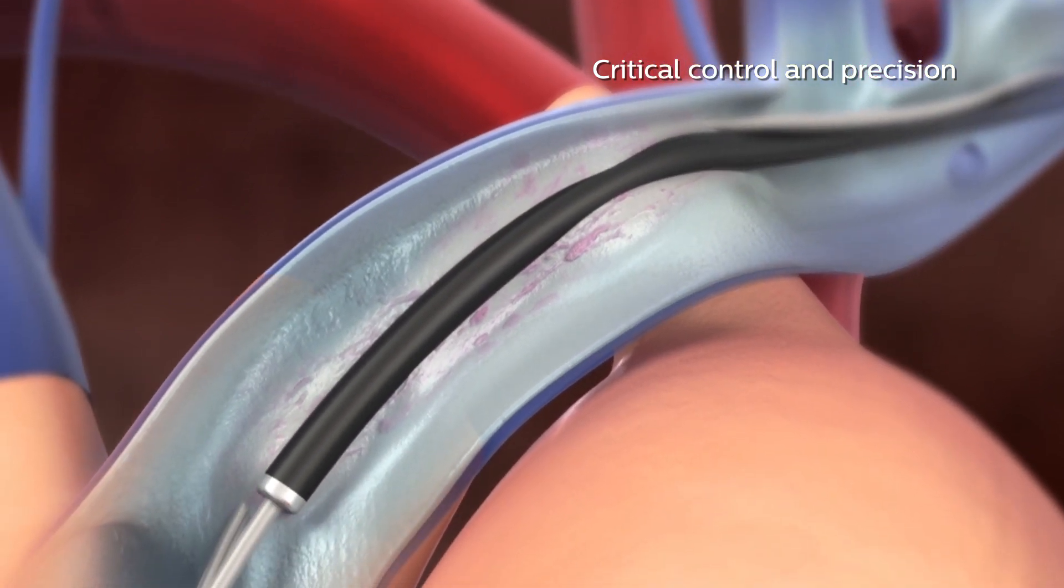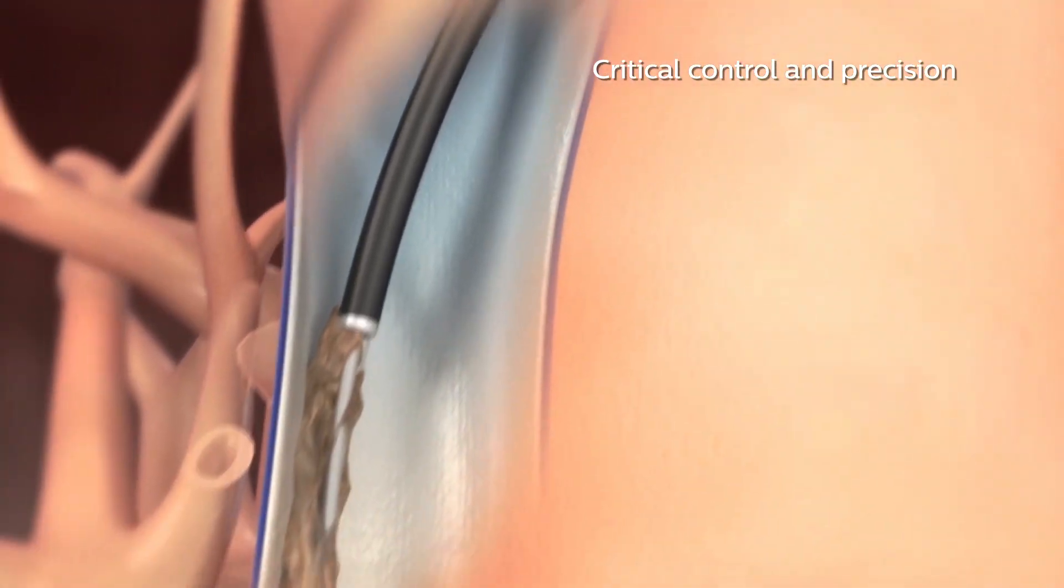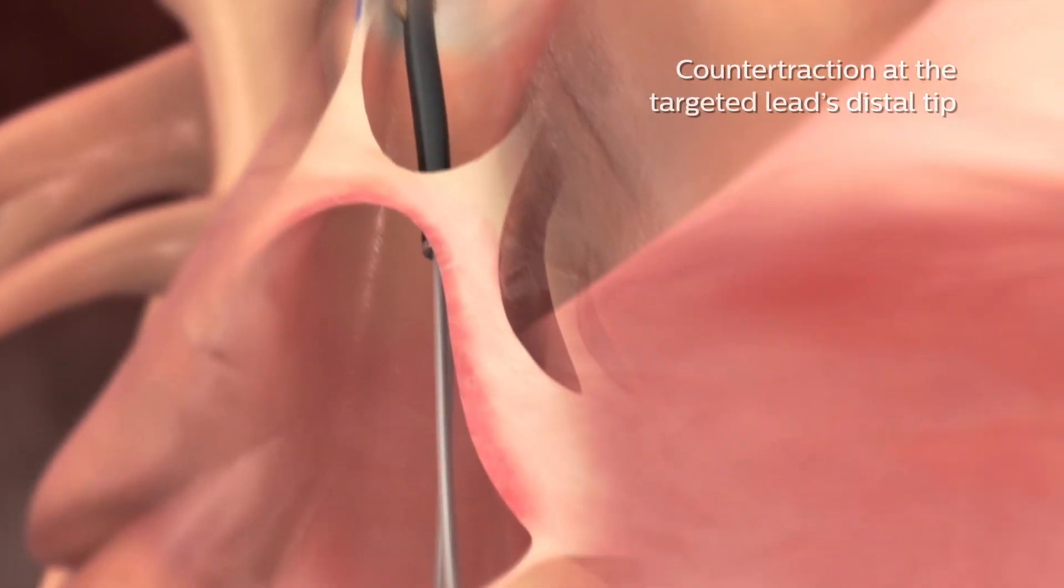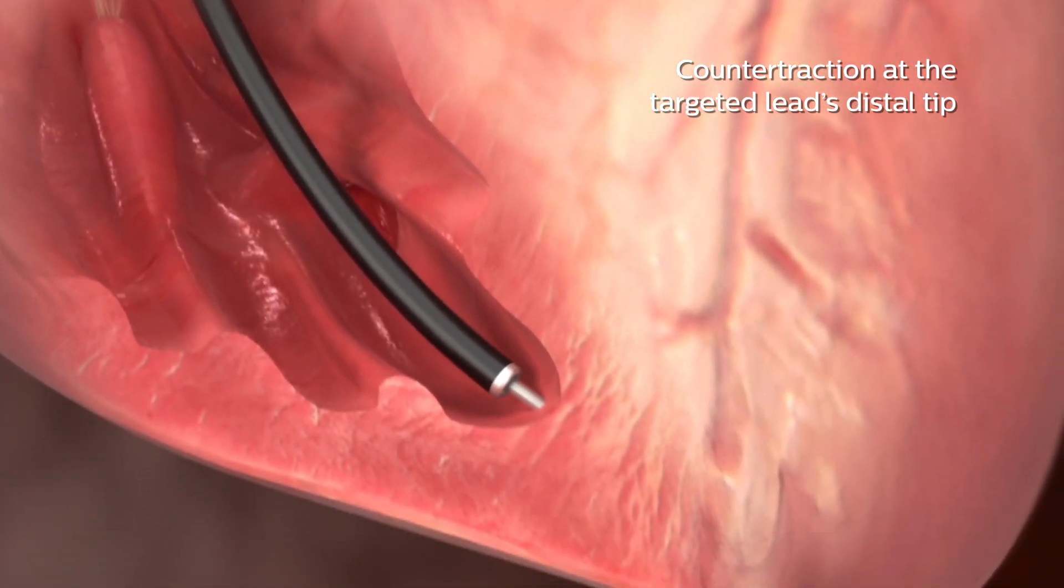Tightrail provides the critical control and precision you're looking for in lead extraction procedures. The shielded cutting tip design provides counter traction at the targeted lead's distal tip.